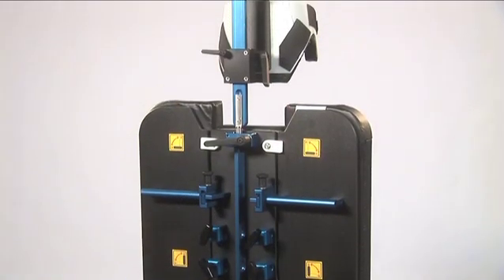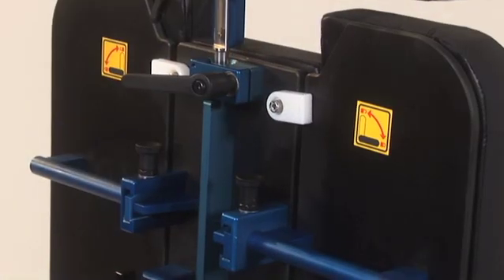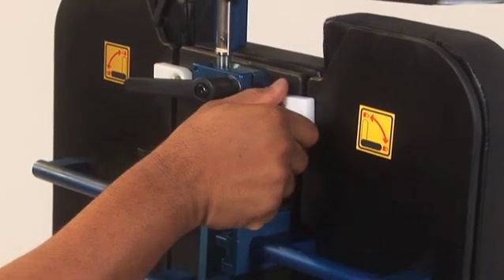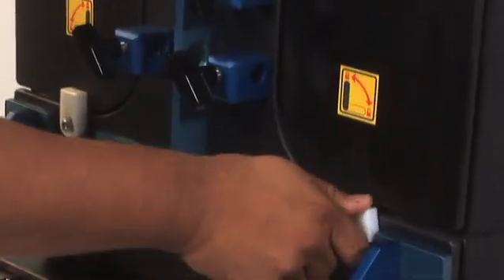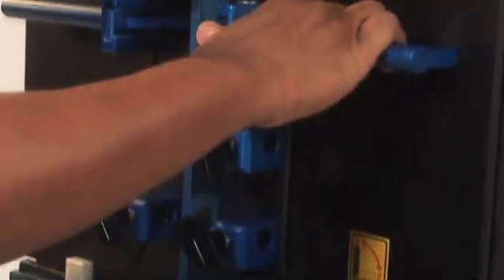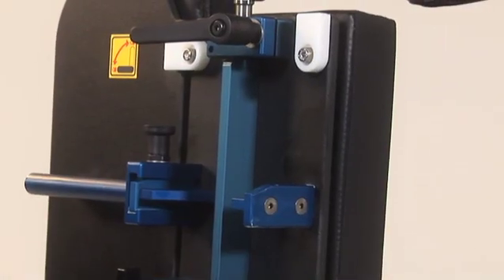The shoulder panels on the left and right side are removable for optimum access to the shoulder area. To remove the panels, turn the top and bottom panel latches down to the unlocked position. Hold the handle with one hand, lift the locking pin up, then slide the panel straight back to remove.